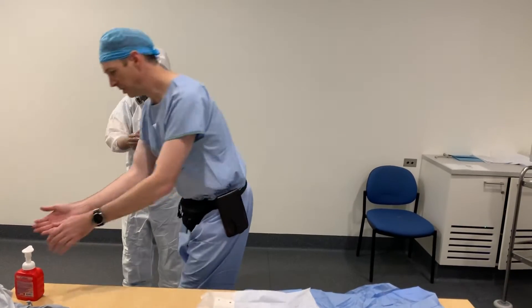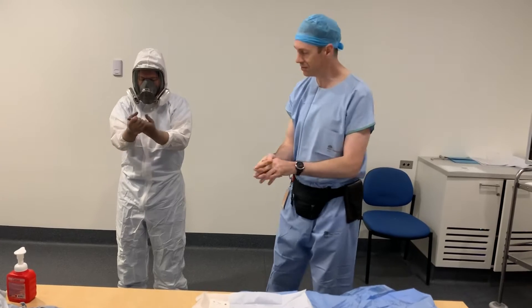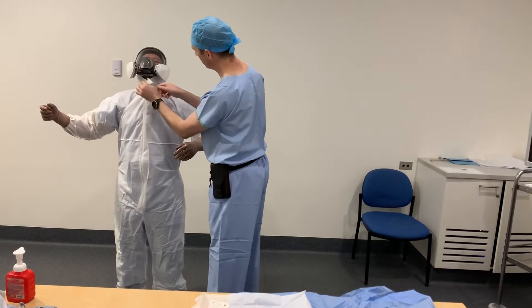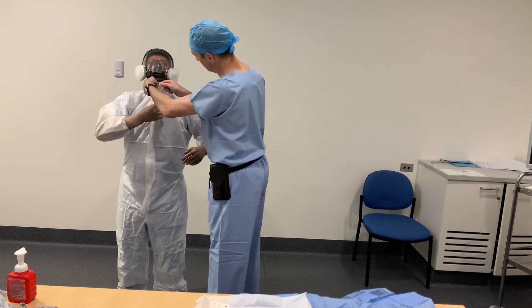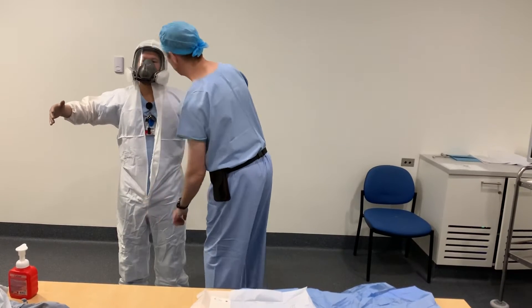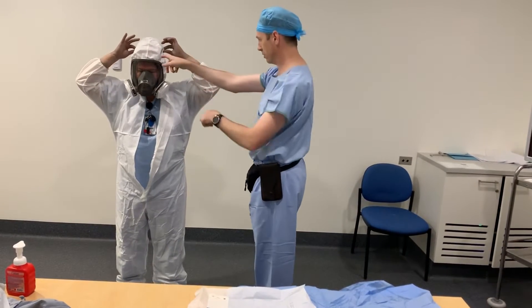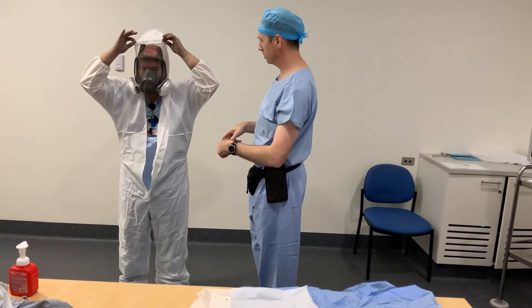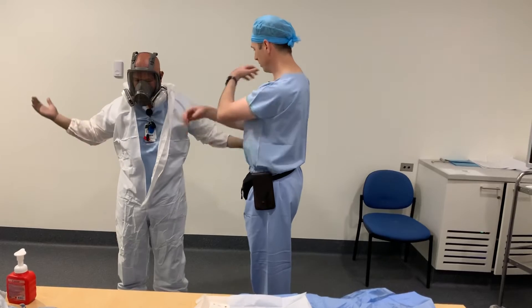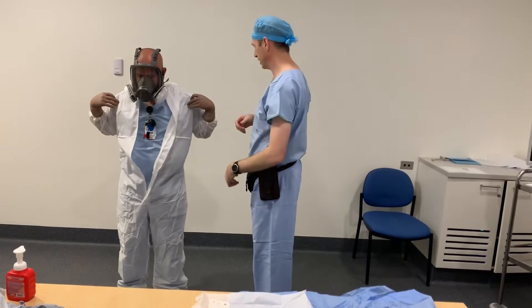The next person is a buddy with sanitized hands or preferably gloved hands. Place your chin up and assist — pull it out and unzip the hood. Then carefully reach up, lift and retract. Rip from the front, lift and retract the hood. Then, grabbing shoulders — cross shoulders — carefully peel the gown down.